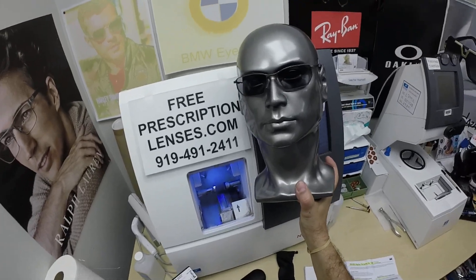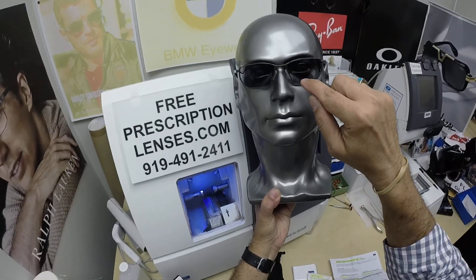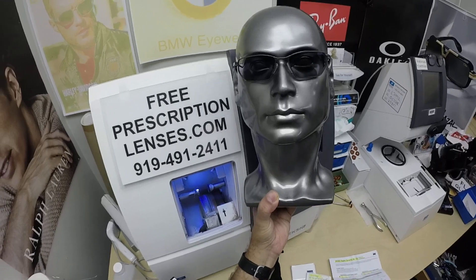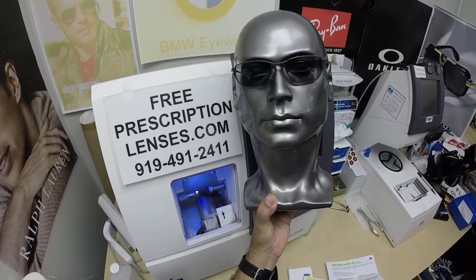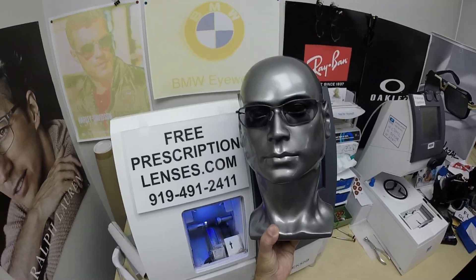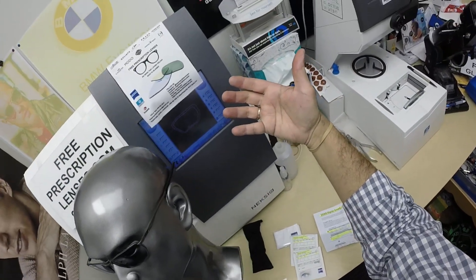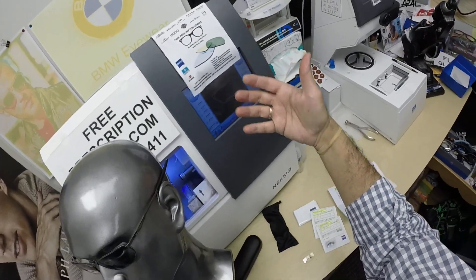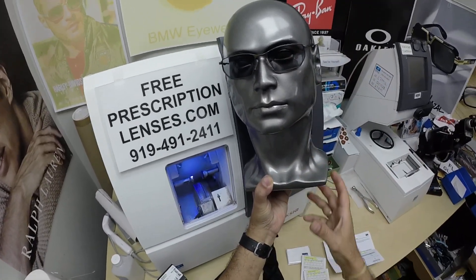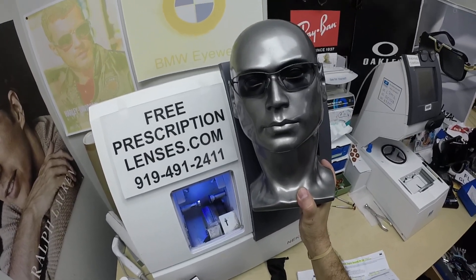With the DigiBoost, you still have the full range of your distance vision, but at the bottom you have a little bit more magnification. This is not really a progressive lens — they're designed differently. Most people over the age of 40 need a progressive lens. This gives you a little bit more plus power at the bottom for when you spend all day looking at digital handheld devices: cell phones, tablets, laptops. When you look down, you actually get a little bit more magnification.